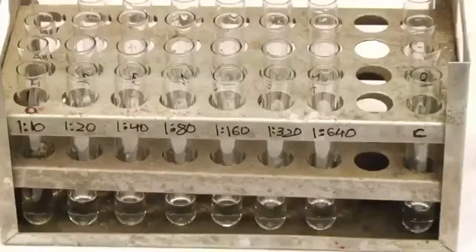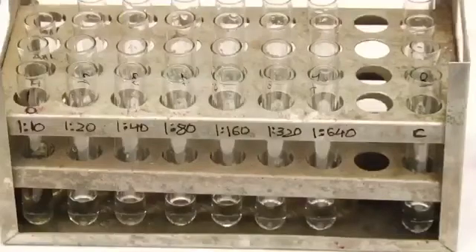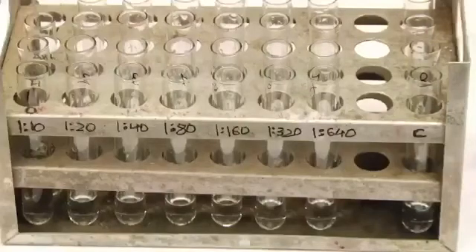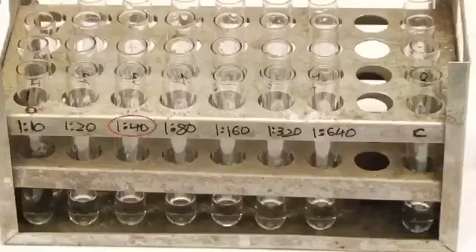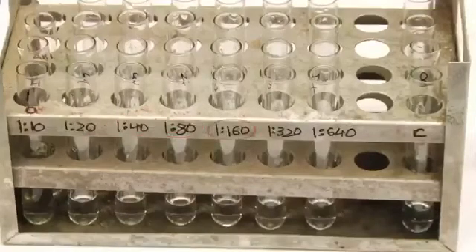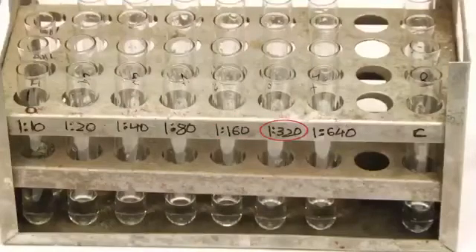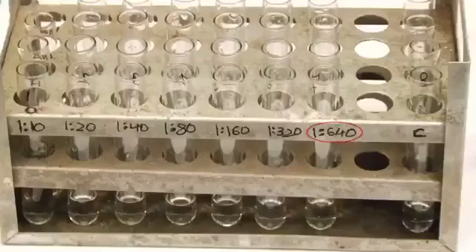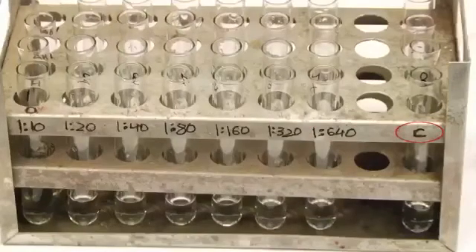Now, the dilutions of the serum sample achieved from tube number 1 to 7 respectively in each set is as follows: 1 is to 10, 1 is to 20, 1 is to 40, 1 is to 80, 1 is to 160, 1 is to 320, 1 is to 640. Tube number 8 in all the sets serves as a saline control.